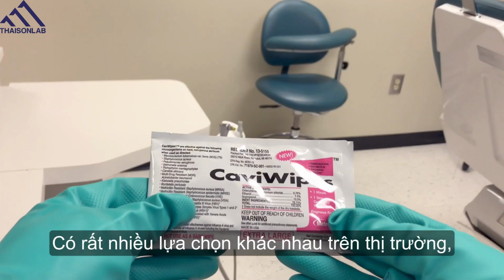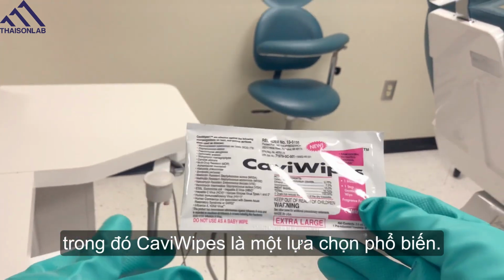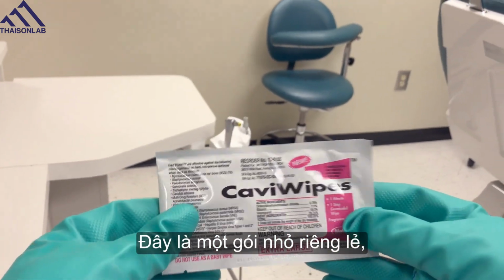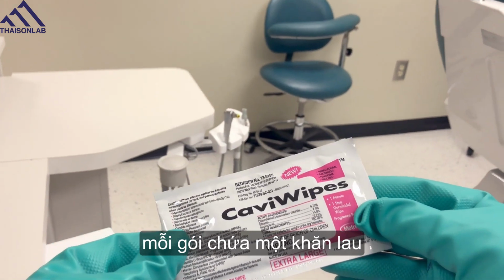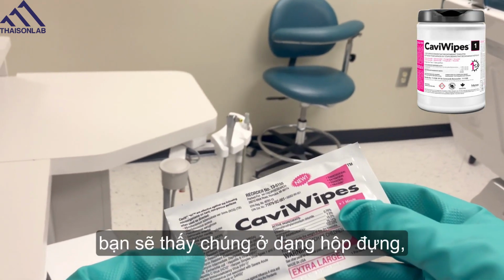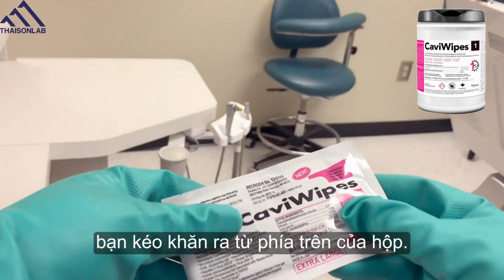There are a bunch of different options on the market. CaviWipes is a popular option. This happens to be an individual pouch. There's one towel in each pouch. Most often you'll find these in canisters, like Clorox wipes. You pull it from the top of the canister.